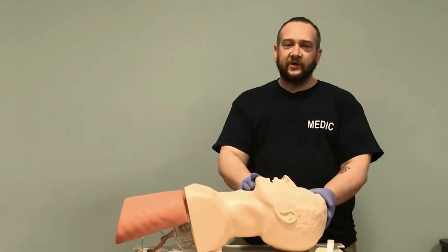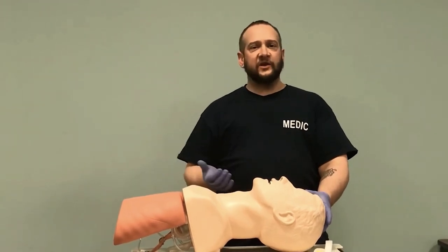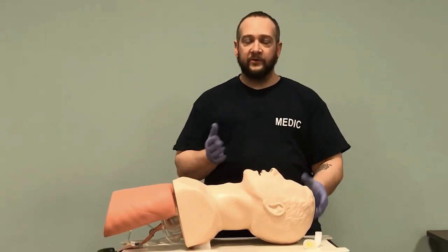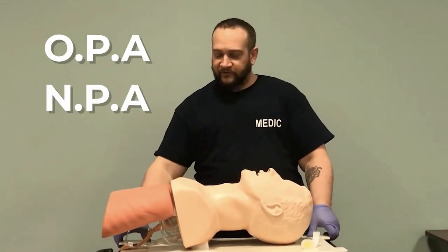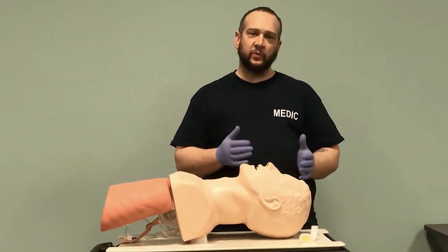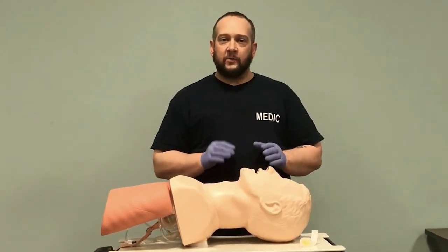When we open the airway, that does a nice job displacing the tongue. The problem is we need something a little bit more to make sure the tongue stays in the position we want. We have two simple adjuncts at the BLS level: the OPA and the NPA. We've already done opening, checked for patency, suctioned if needed — now we're on to the third step of securing the airway, starting with the OPA.